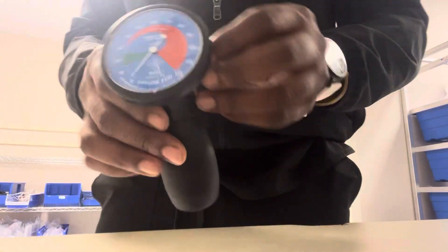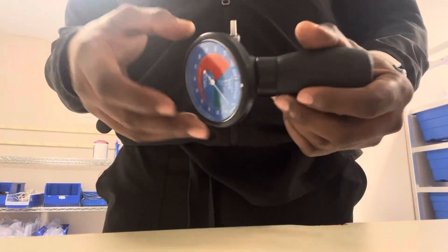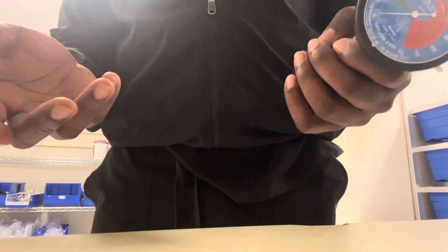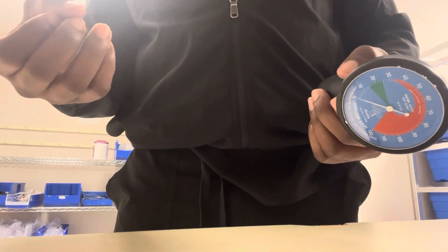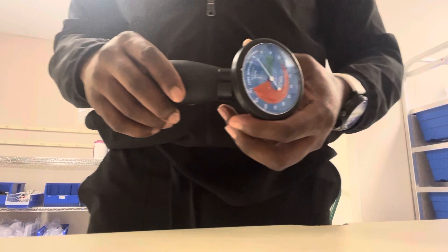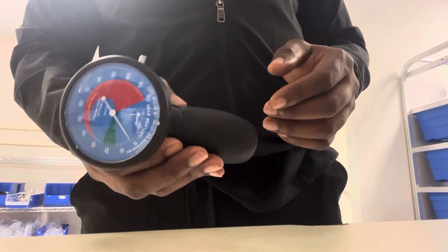This comes in handy because a lot of times we don't want to cause pressure necrosis from the patient's cuff being hyperinflated. There's no way to see if the patient developed pressure necrosis, so to avoid any incident of such things happening, we use a device such as the pressure cuff manometer.